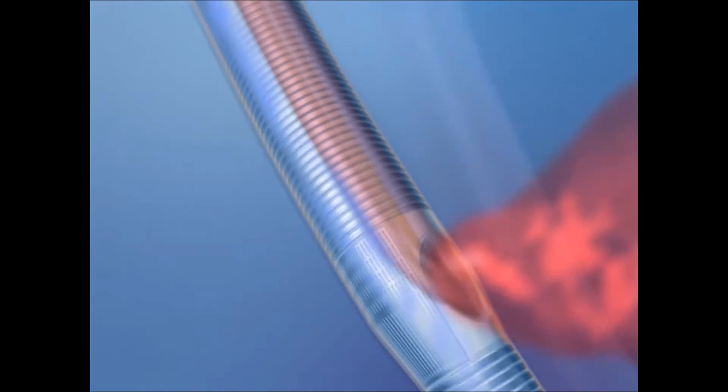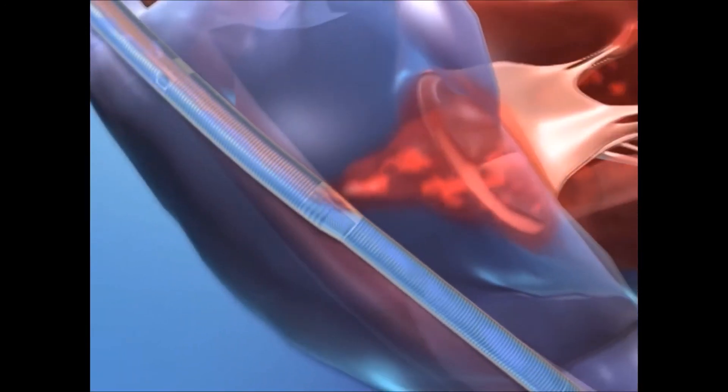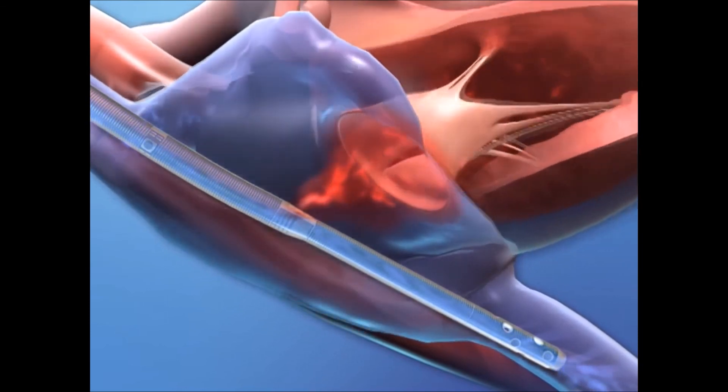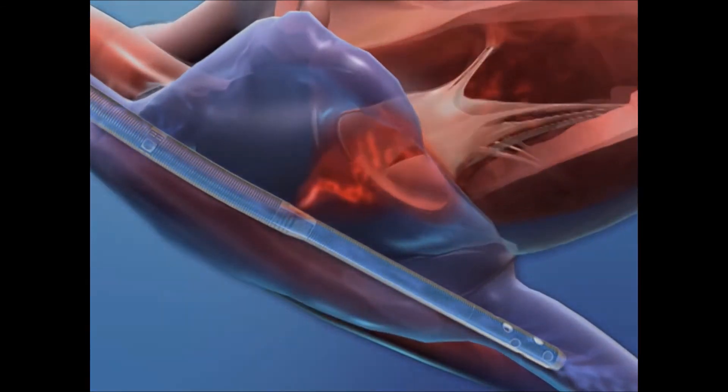By providing a minimally invasive single site solution, this superbly engineered catheter greatly enables the practice of extracorporeal life support therapies.